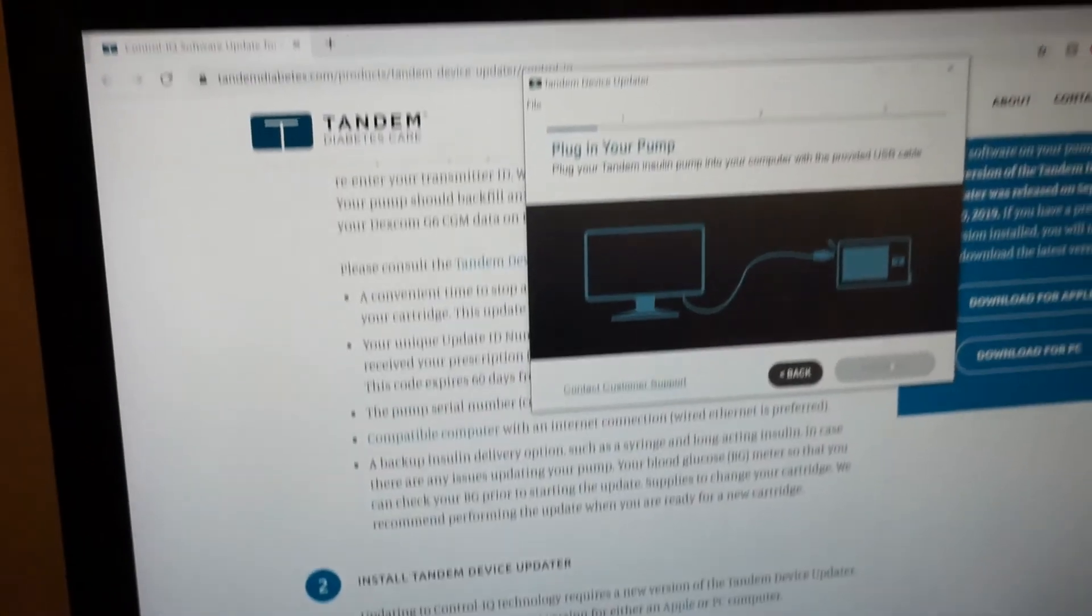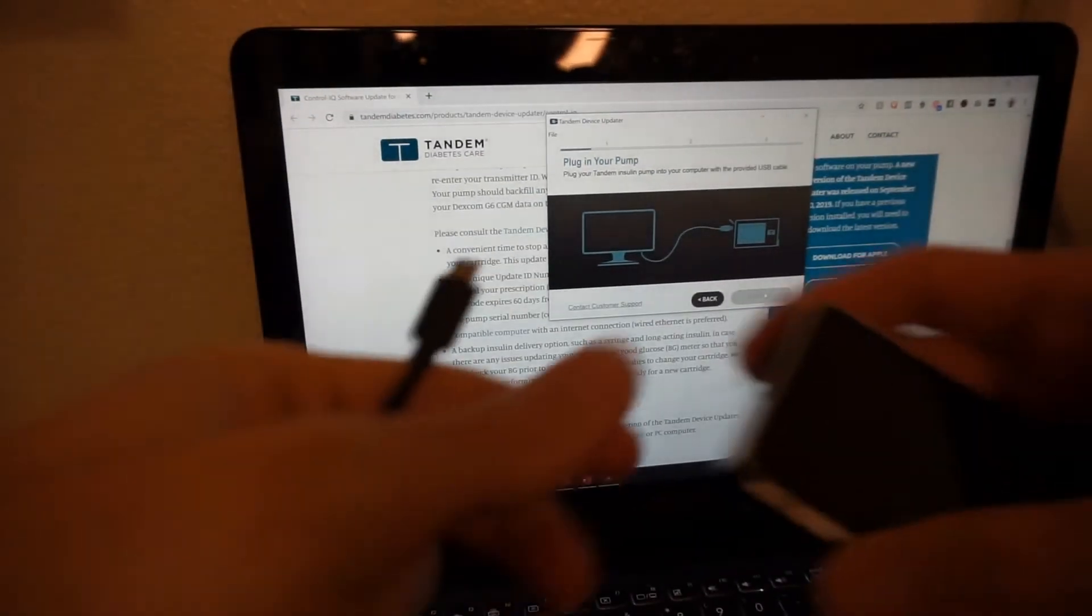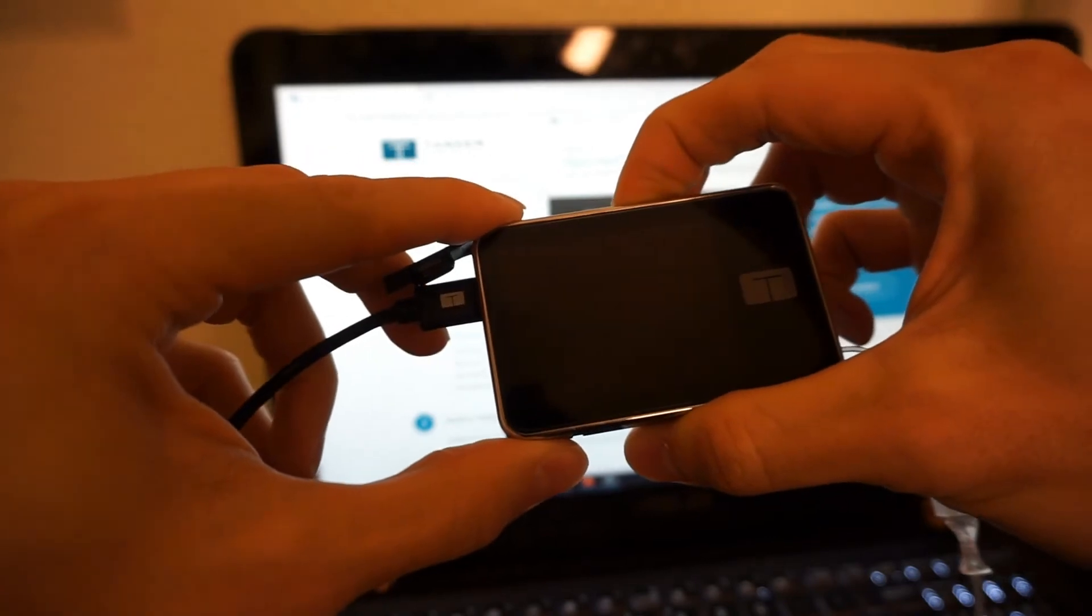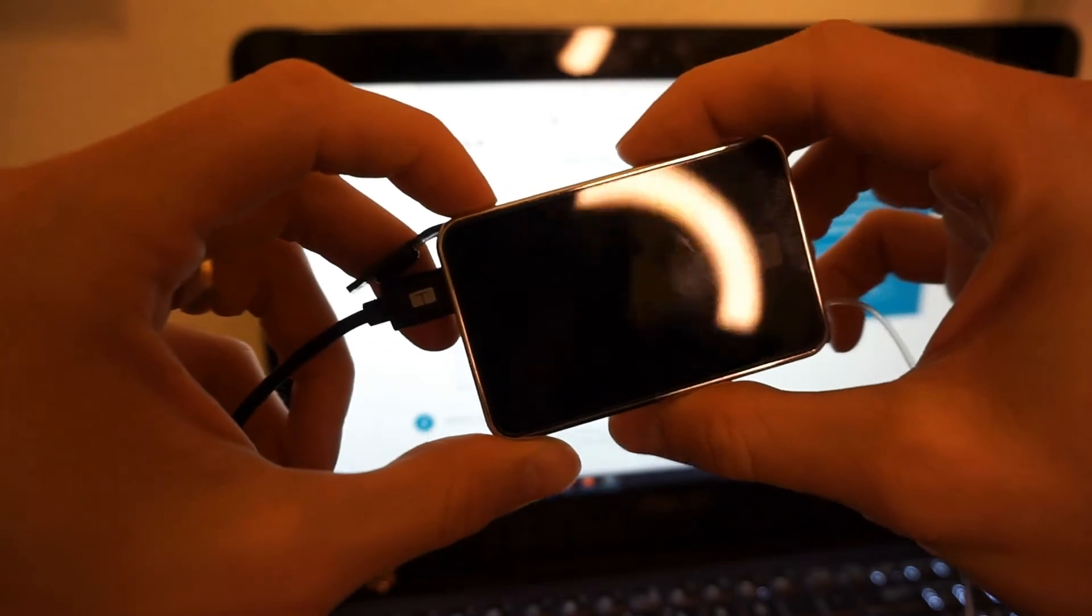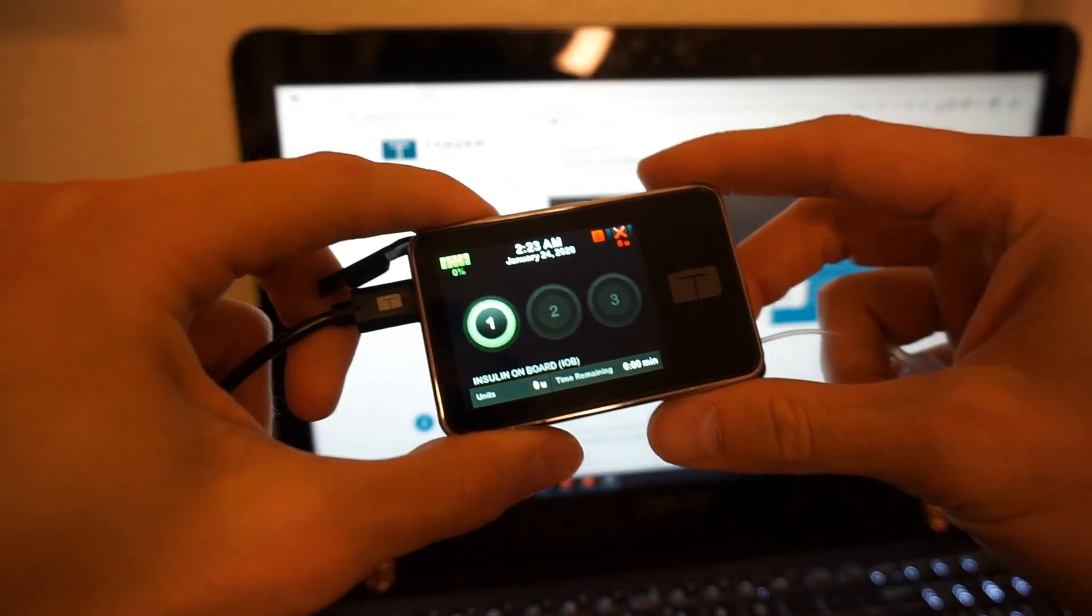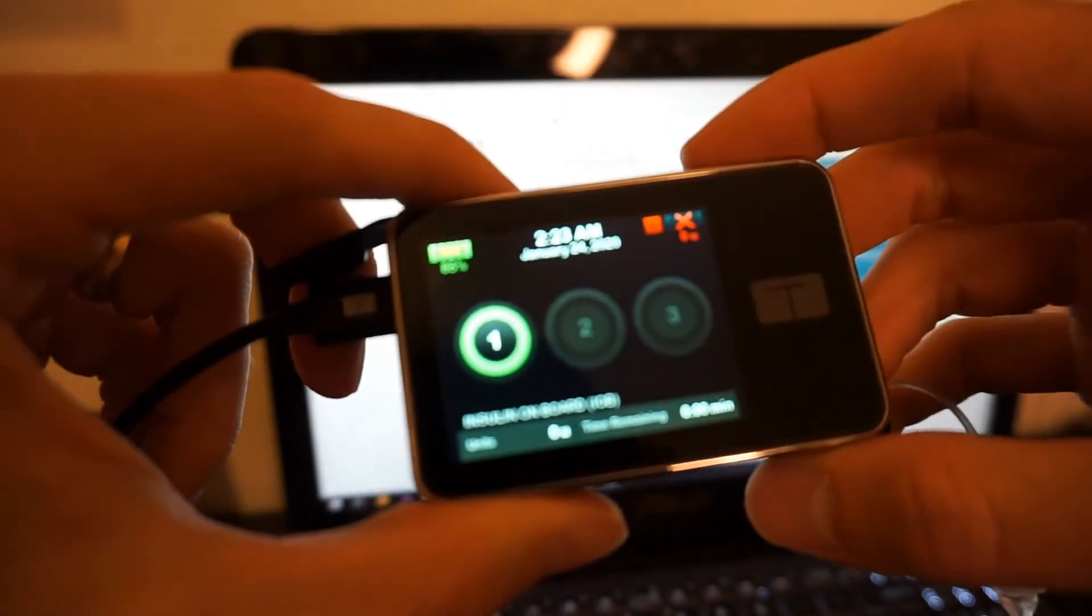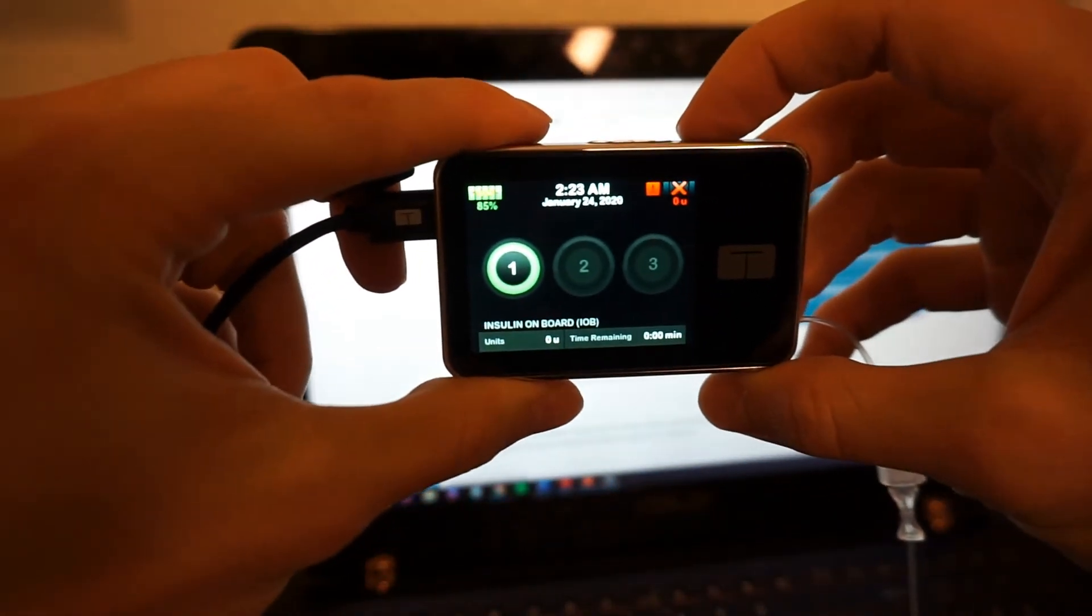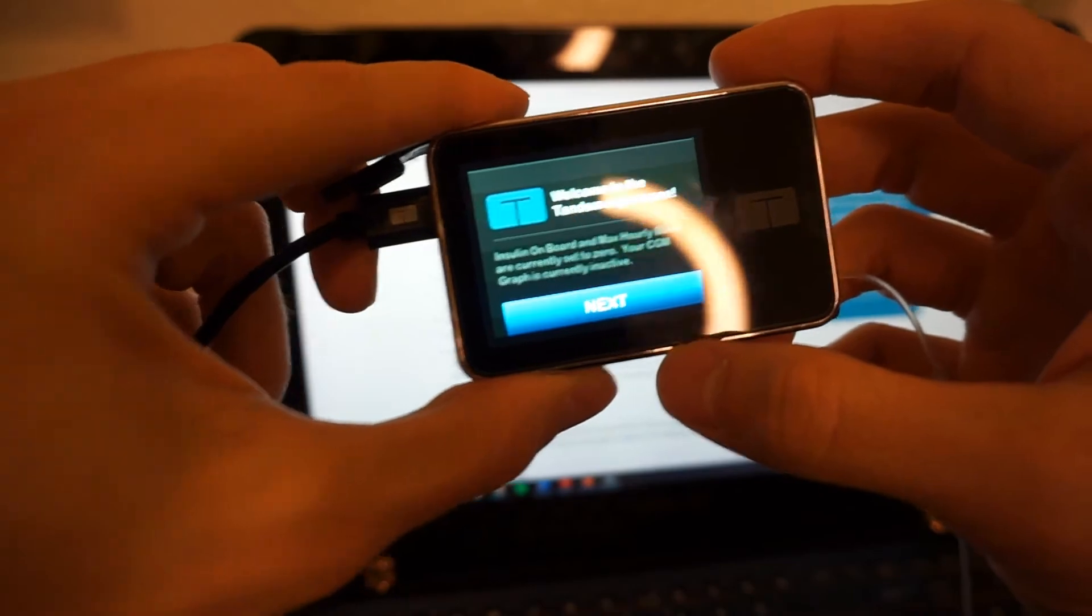All right, guys, time to figure out if that is going to turn my pump back on. Ready for this? Here we go. In 3, 2, 1, nothing happened. Hold down the power button. It's working! All right, so, what happened? There we go. All right, we got 0%, 5%. Okay, it is beeping like crazy right now. Let's see if we can get that to focus. There we go. Okay, let's say we're at 85% now. Cool. Pretty sure I have a different CGM.